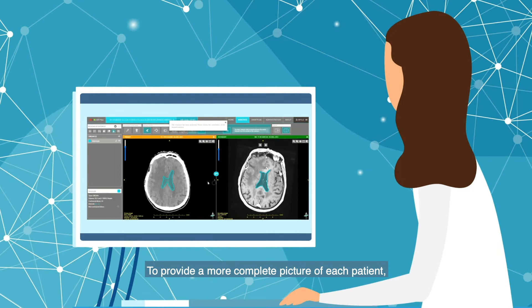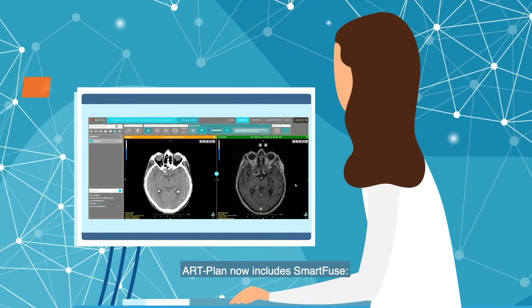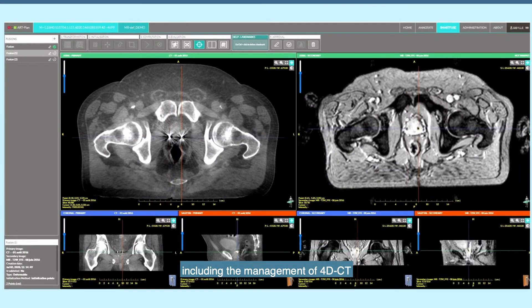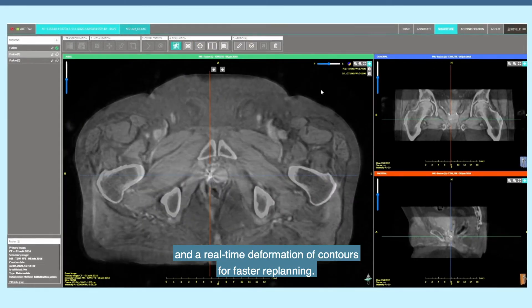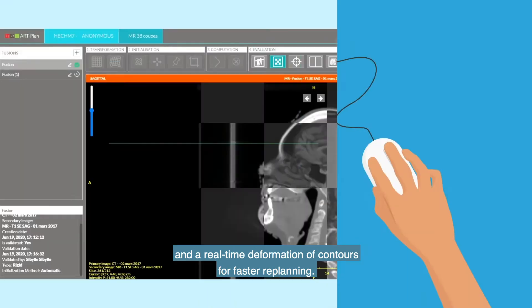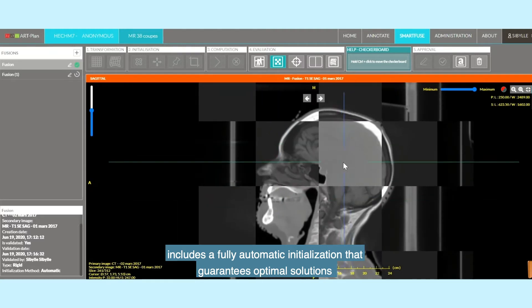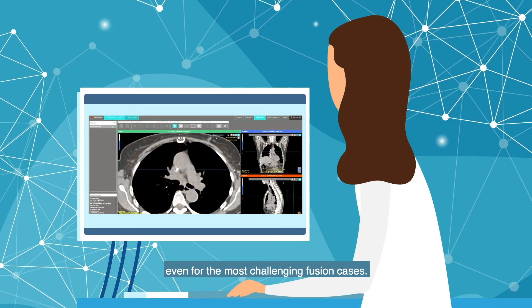To provide a more complete picture of each patient, Artplan now includes SmartFuse, an AI-powered software for high-precision rigid and elastic fusion, including the management of 4D CT and real-time deformation of contours for faster replanning.